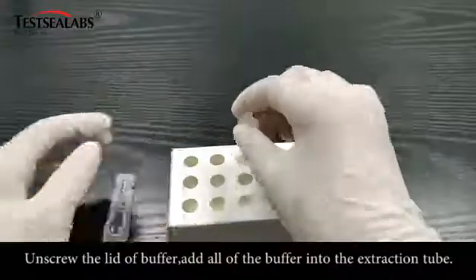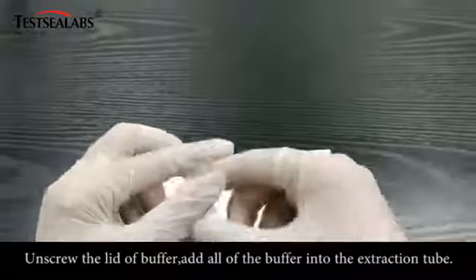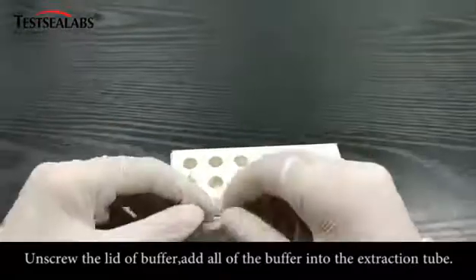Workstation: unscrew the lid of the buffer, then add all of the buffer into the extraction tube.